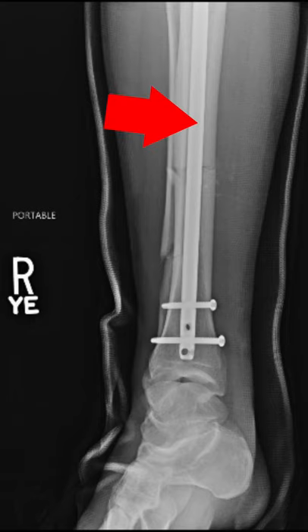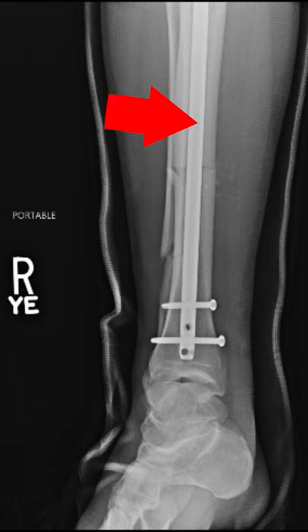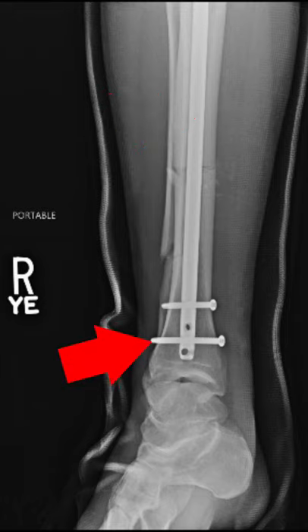The AP radiograph of the distal tibia shows an intramedullary nail well fixed with two distal locking screws. The reduction is excellent — nice work by the treating surgeon.